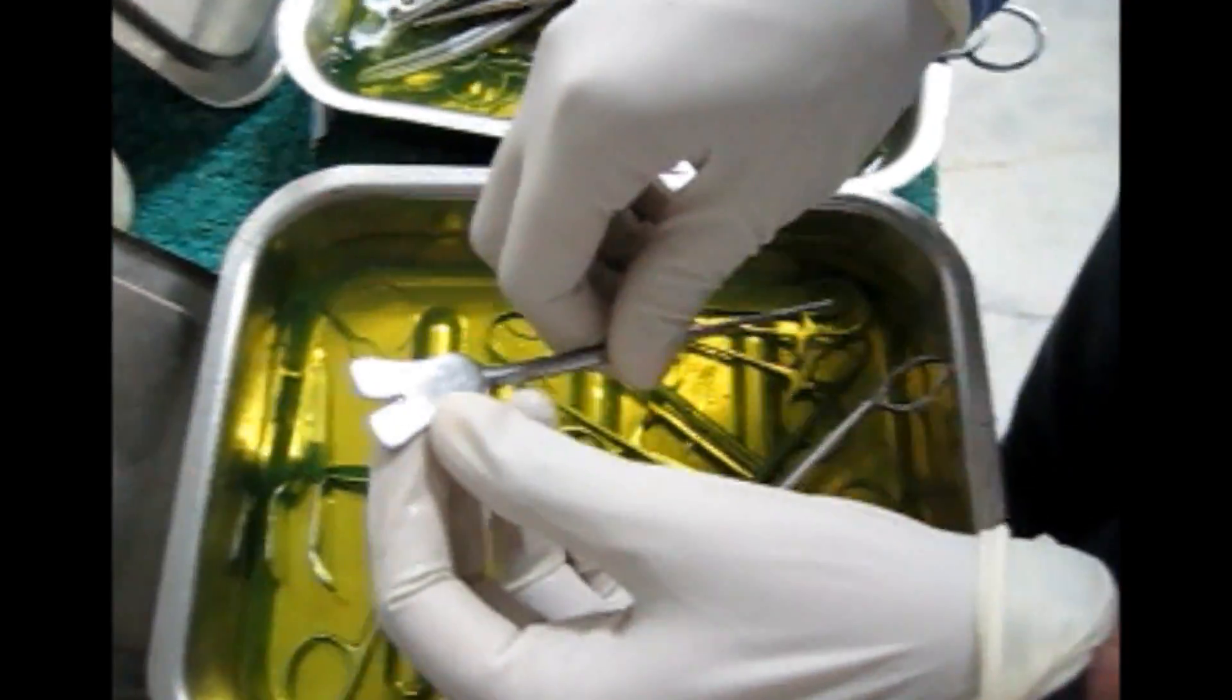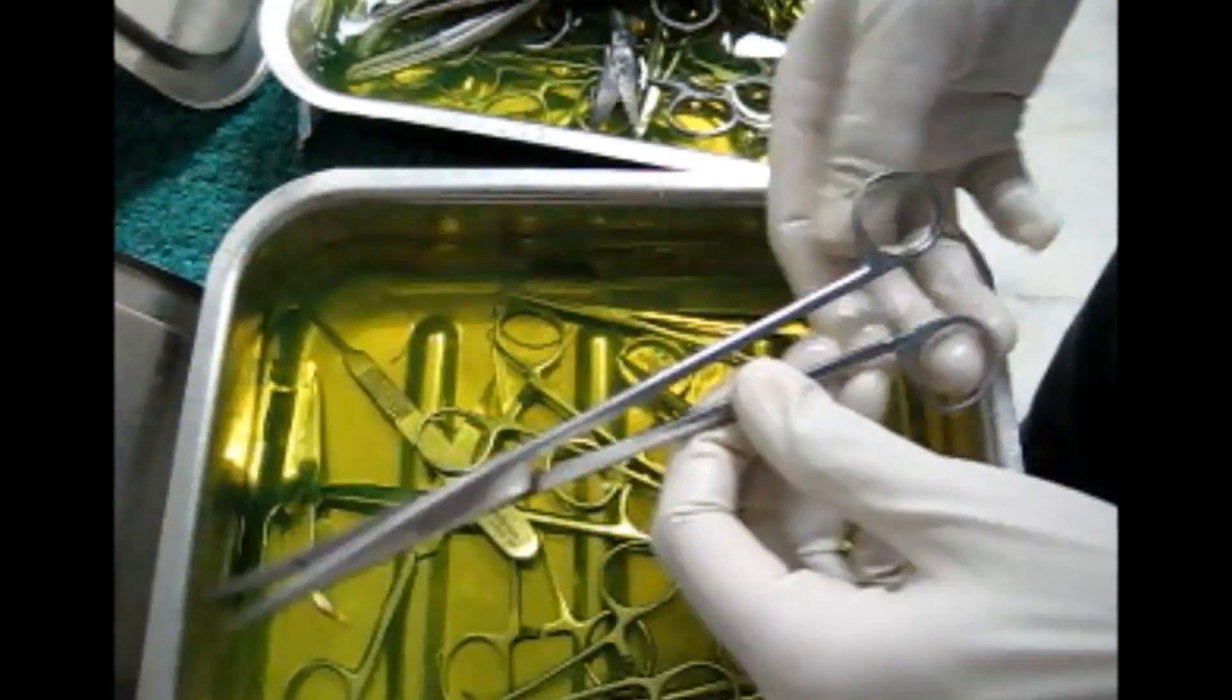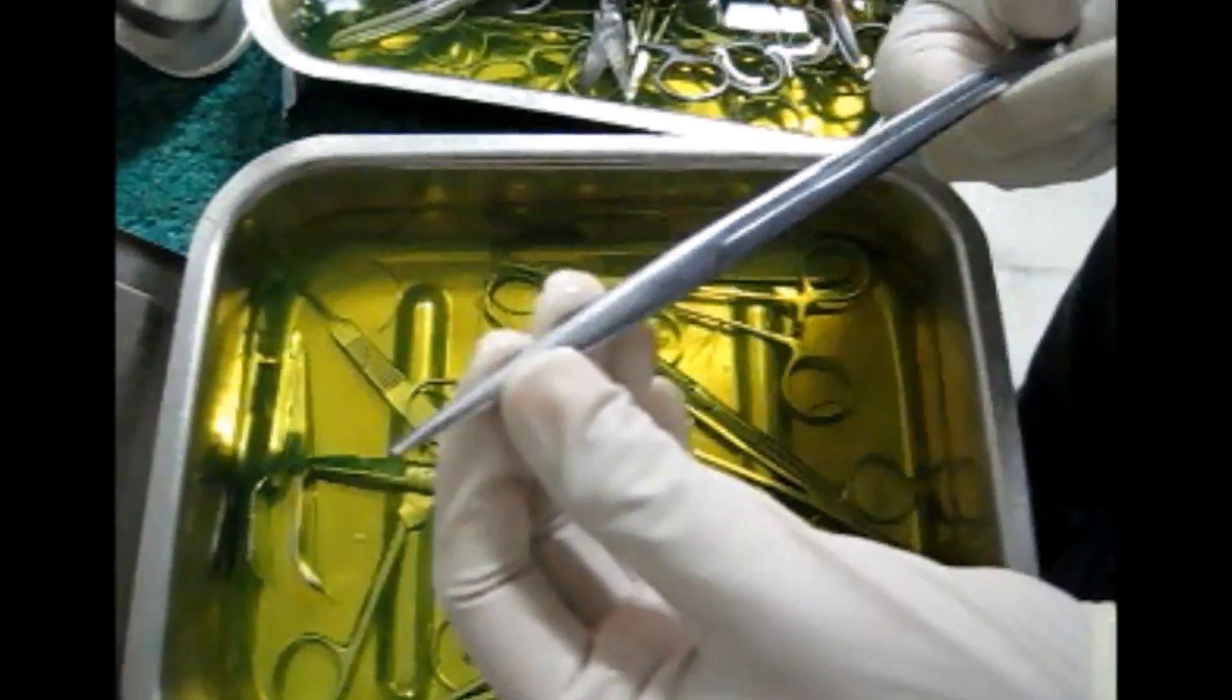This is the butterfly. This is used to hold the tongue.